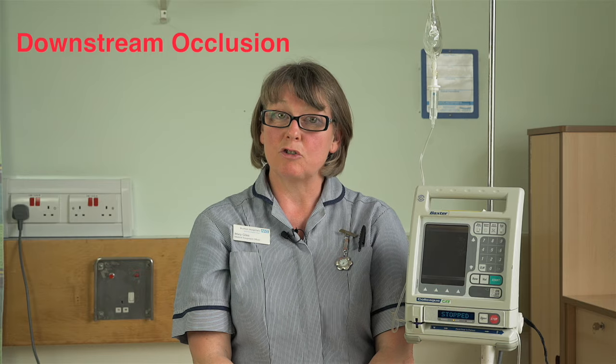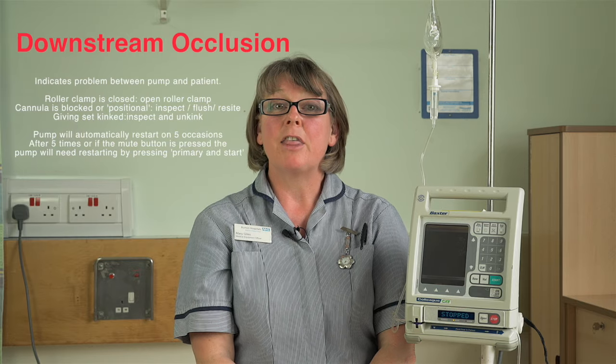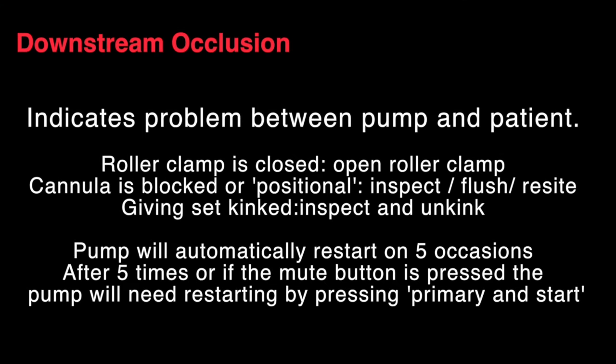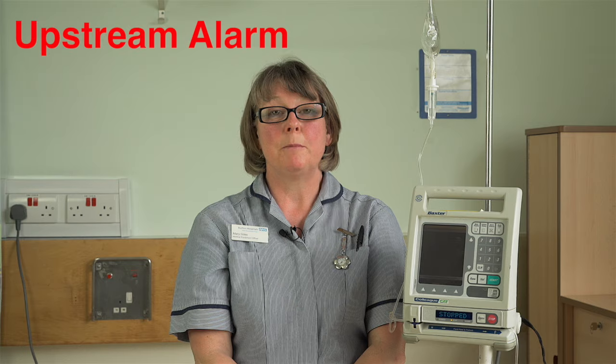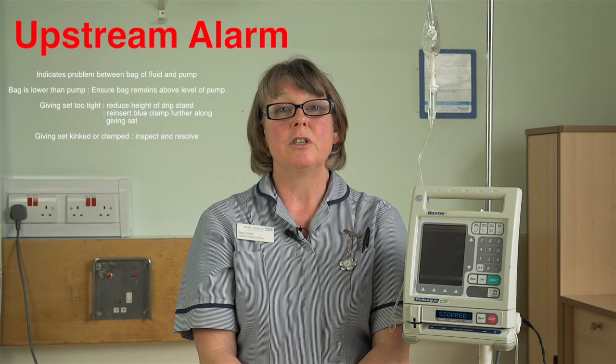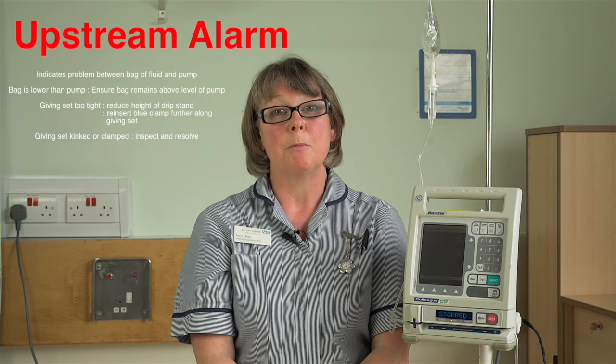I'm going to tell you about some common alarms. Downstream occlusion. Their causes and resolution will be found to my right. Upstream alarm. The common causes and resolutions can once again be found on the graphic to my right.